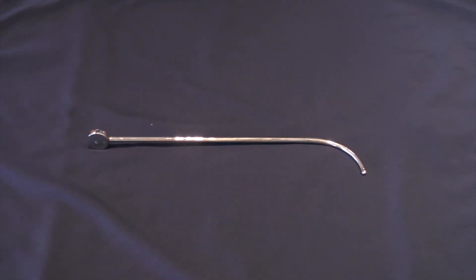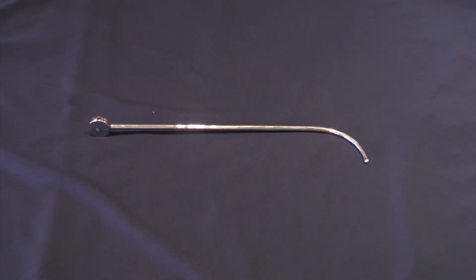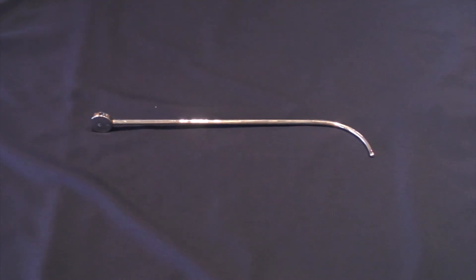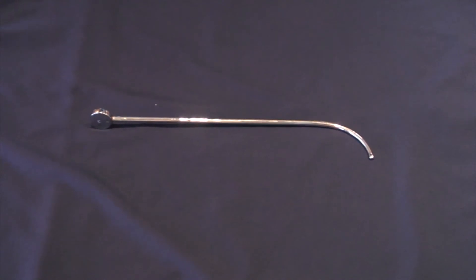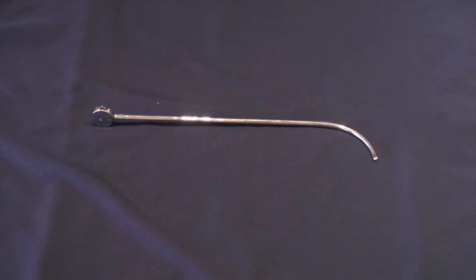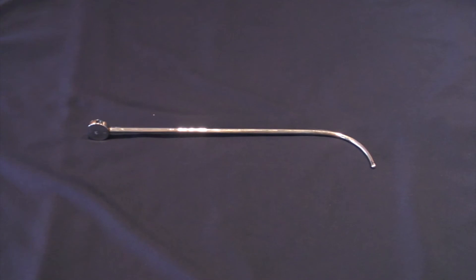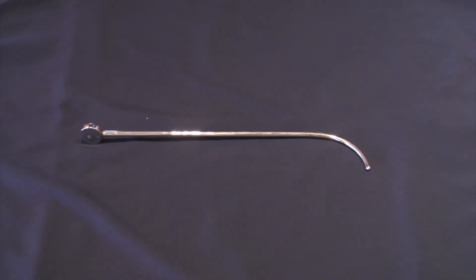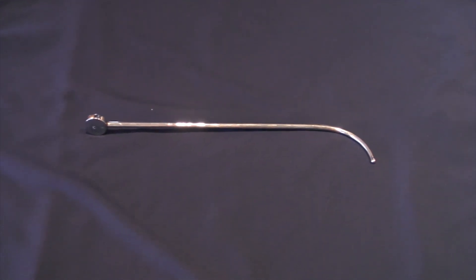This is an example of a urethral sound or dilator. These are used in the male for stretching urethral strictures. They were called sounds in ancient times because they were used to tap against potential bladder stones, indicating the presence of the stone. Urethral dilators should only be used by experienced operators and should generally be used prior to attempting catheter insertion with a catheter introducer, to ensure that the lower urinary tract is patent and continuous.